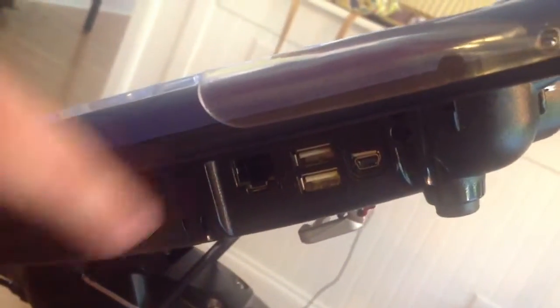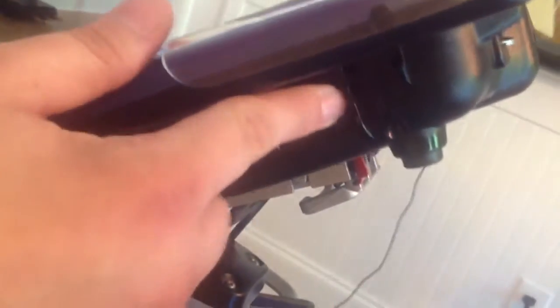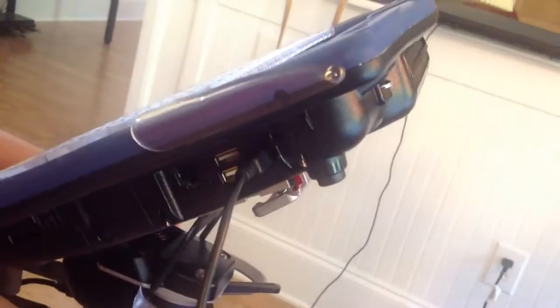And then on her device, I'm going to get real close up — that funky little thing right in the front, right up some. That's the one you want, right there. And then that's plugged in.